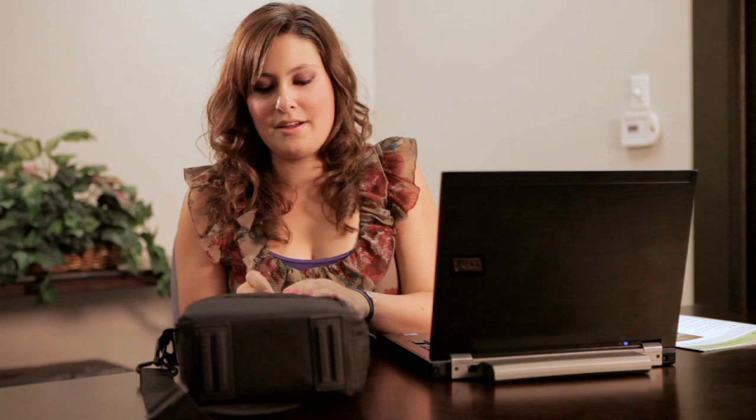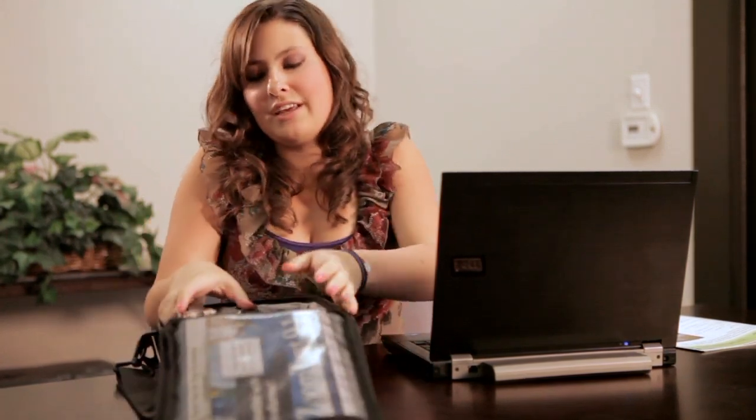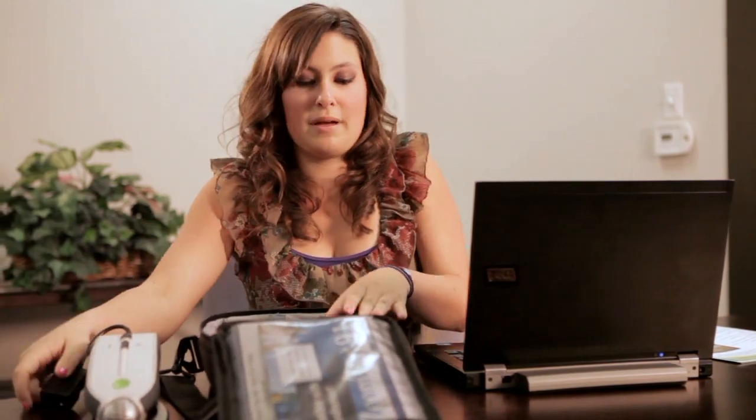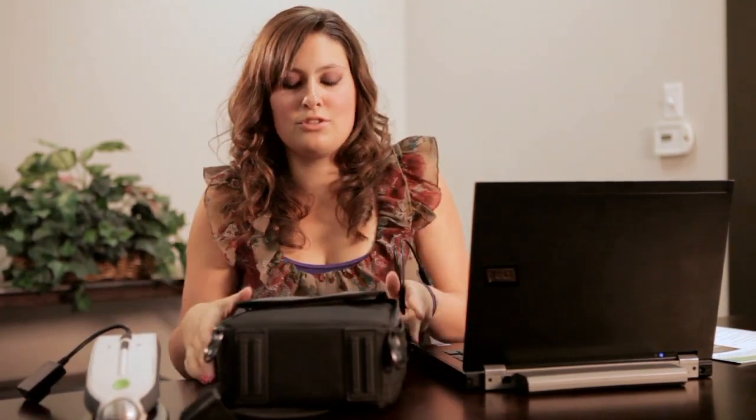First thing I do when I get to class is set up my laptop. As I pull out my Transformer, it only takes about a couple of minutes to set up. Usually as my professor is getting to class and setting up, it takes just as long.